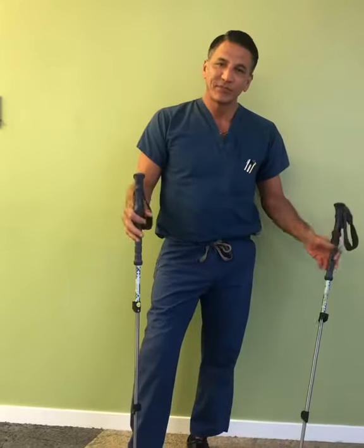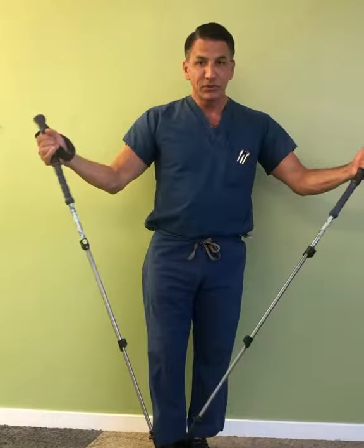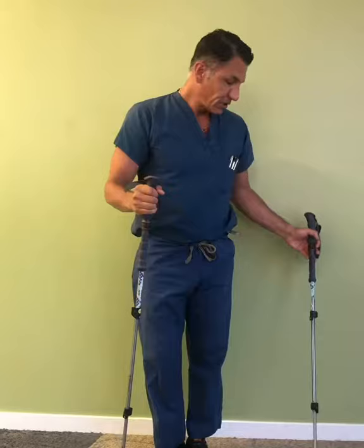Hi, Dr. Moore here. I wanted to tell you something about using walking sticks. Some people who have hip and knee problems use two of them for tandem walking, but sometimes that gets a little bit difficult and cumbersome because it's two sticks.